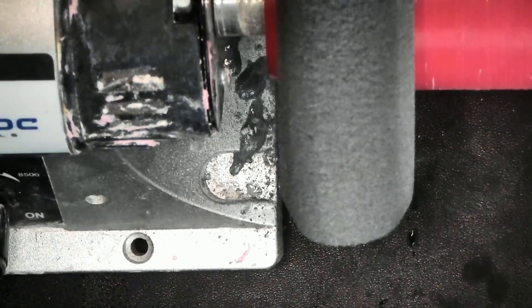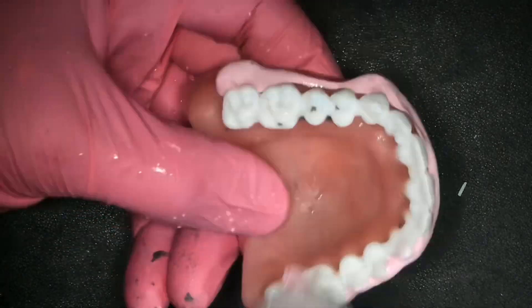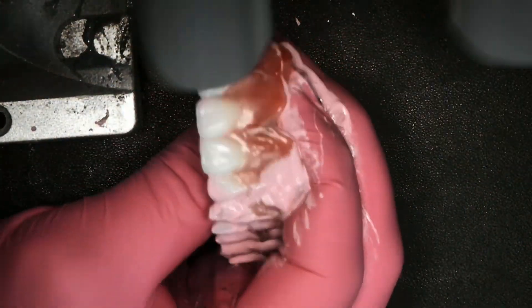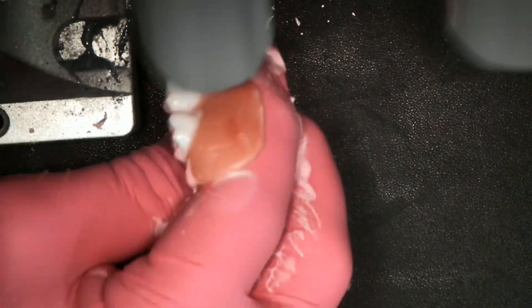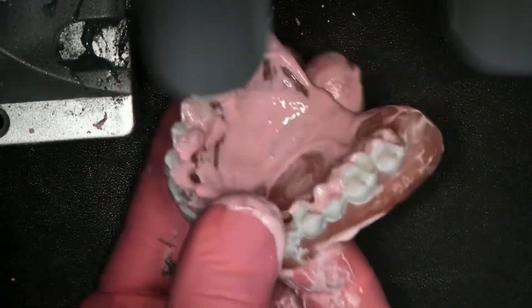Step number 2 is an ultra high shine step with a fine grit diamond paste. Here's the diamond paste in the Mod Polishing System. If you did not have this, you could use Hatho — which makes amazing diamond paste — or Ivoclar. I recommend those two companies for their diamond paste. I'm using a custom lathe chamois created as part of the Mod Polishing System; if you don't have access to this, you could use a cotton buff. Look at it — it's looking wet and shiny.